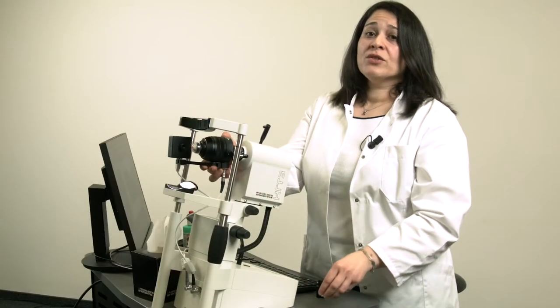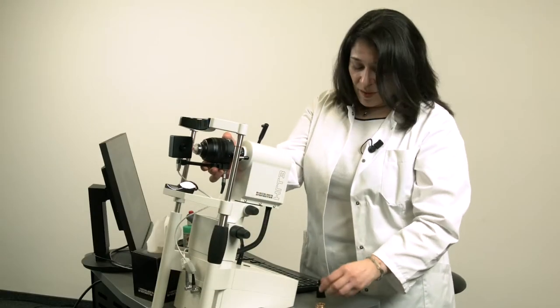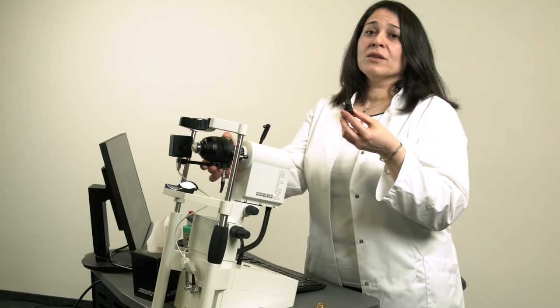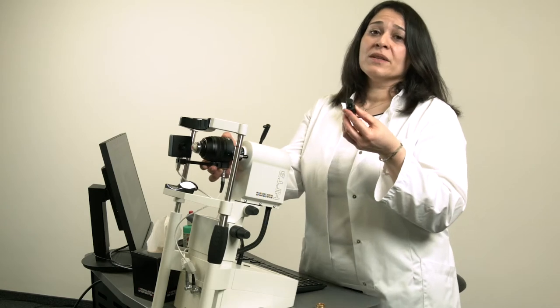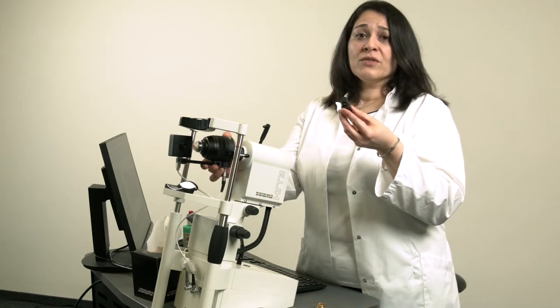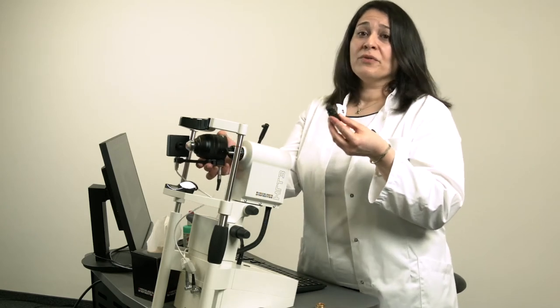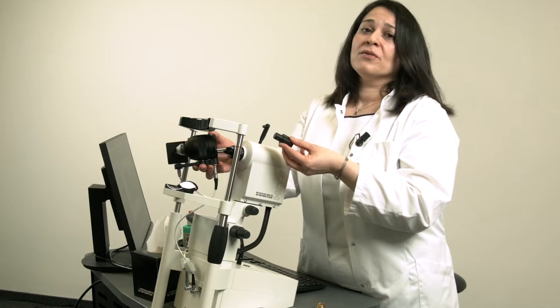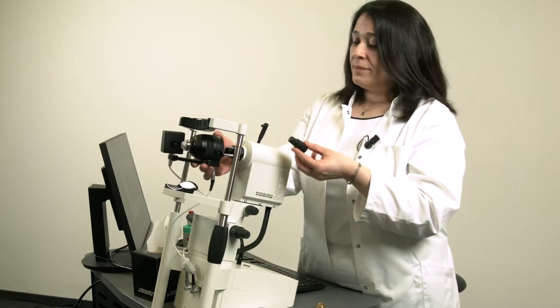To change the field lens, please use this tool which is included in accessories. Use this tool to unscrew the field lens on the objective lens and screw on the other field lens.